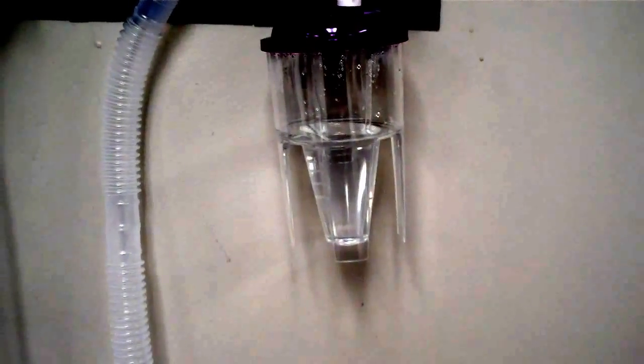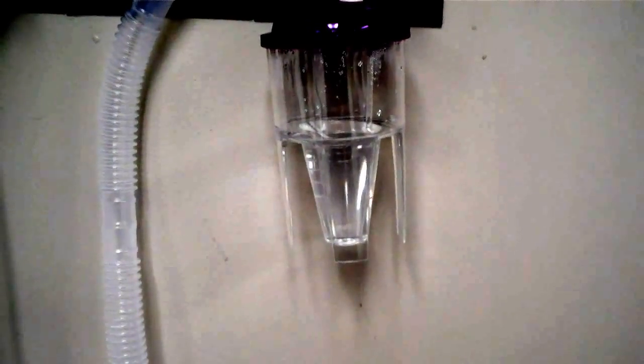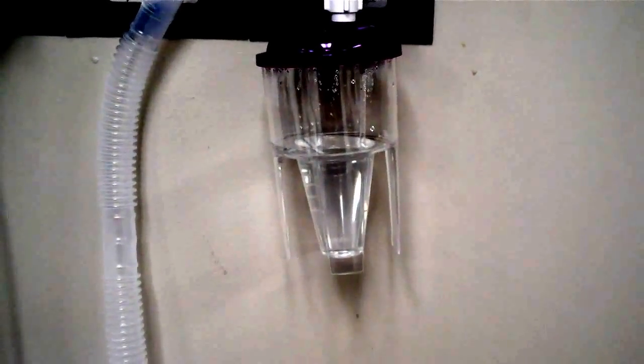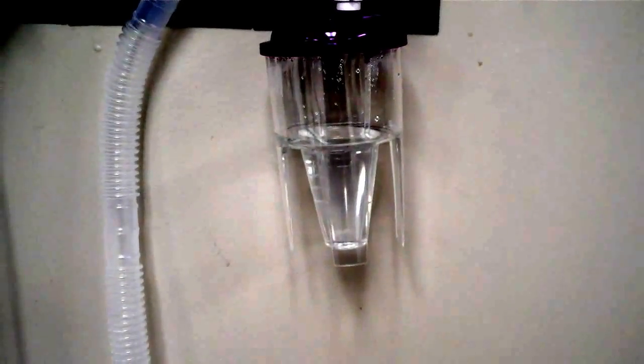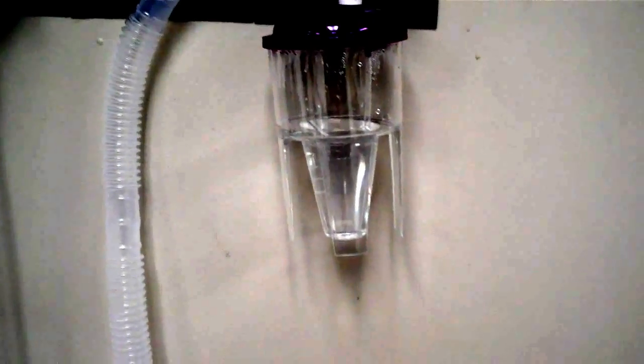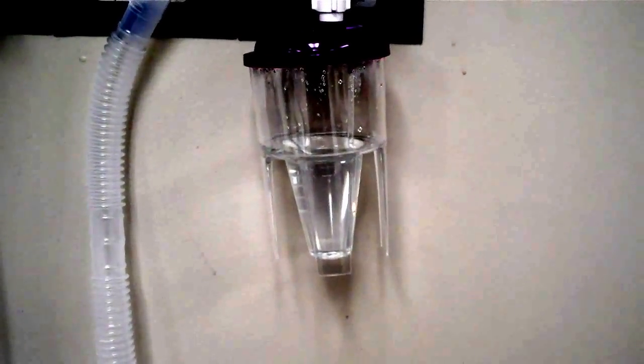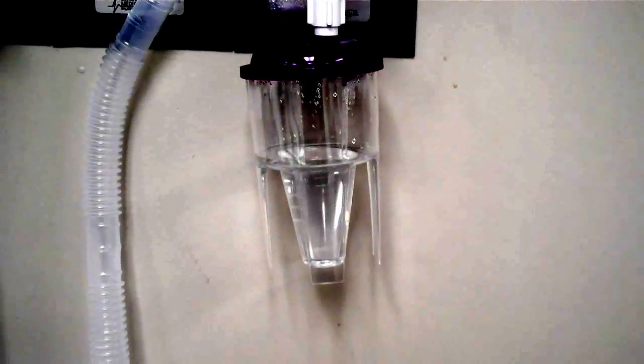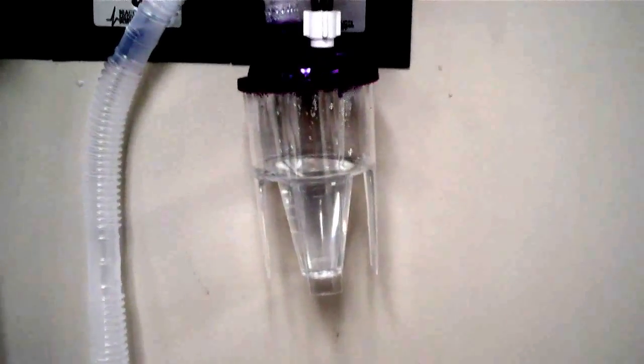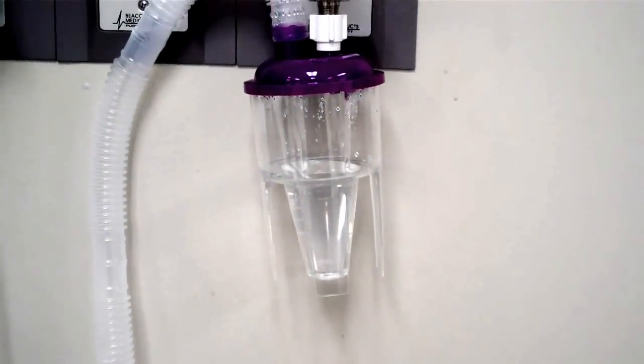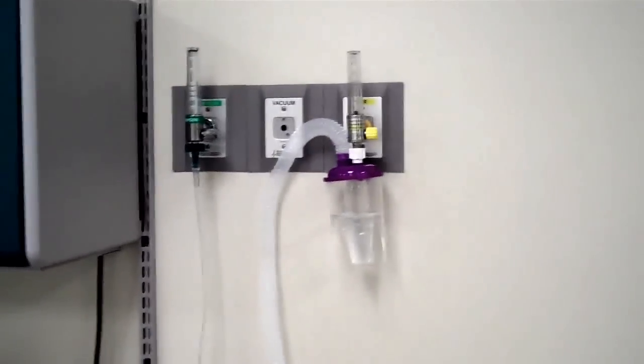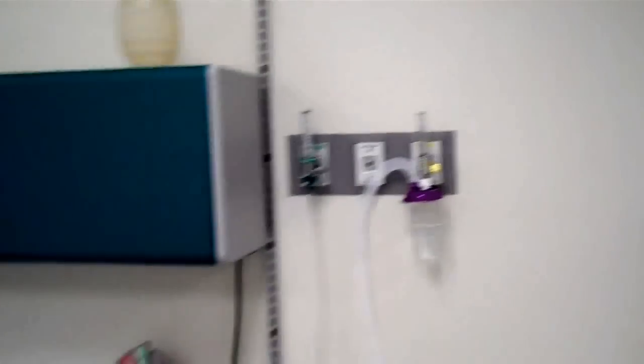What makes up that volume of fluid inside there? Well, that's going to be between how many milligrams of your bronchodilator that you're going to put in there and how much of a diluent or normal saline you're going to mix. This varies from hospital to hospital. Your insert that comes with your large heart gives you dosing instructions and I'm going to back up and place this on the counter and show you that dosing sheet.